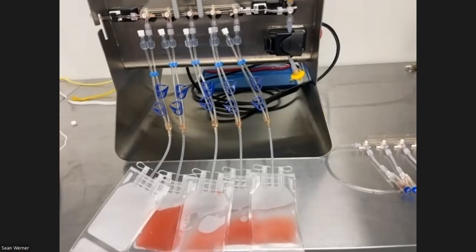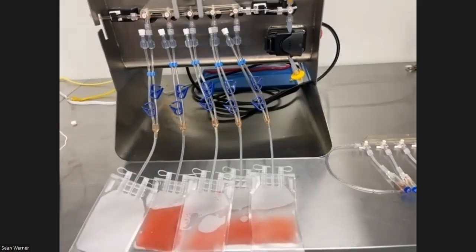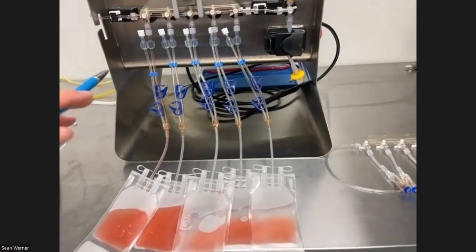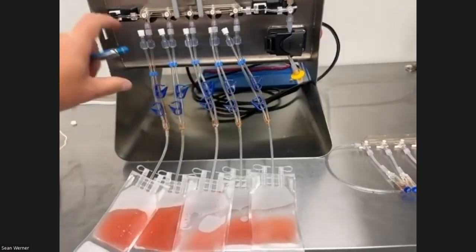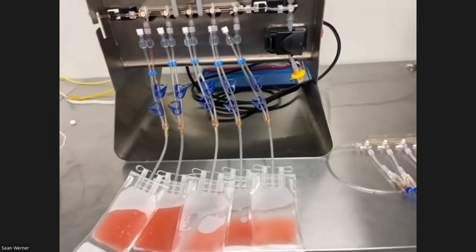Do y'all make the cryo bags or do they come from somebody else and you just incorporate them into the manifold? We use the Charter Medical bags. Those are the ones that we have available. If you already have a different bag that's validated, we'd recommend the DIY set for the outputs because those have a weldable pigtail on them that you can use to create your own consumable using that bag. Okay.